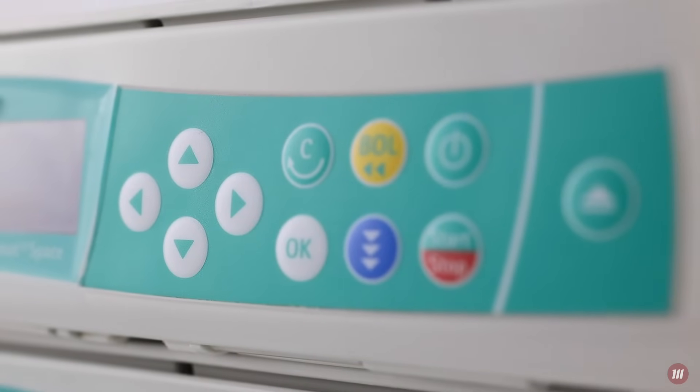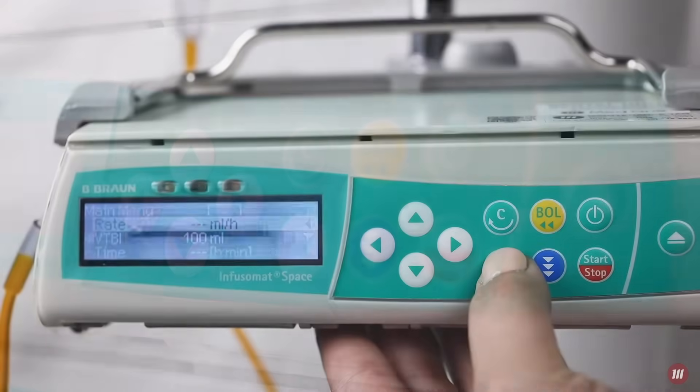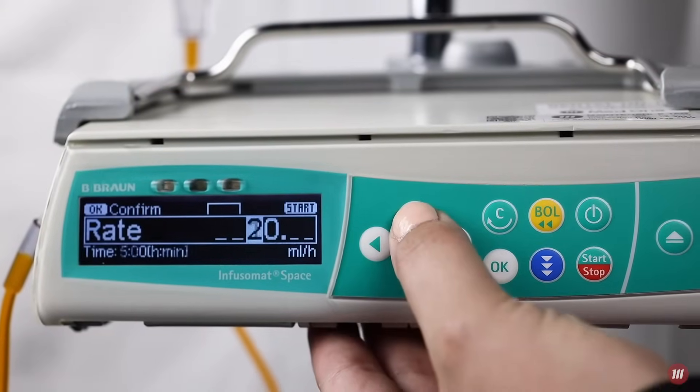The keypad on this pump is a unique feature. It is non-numeric with simple arrows to simplify infusion programming.